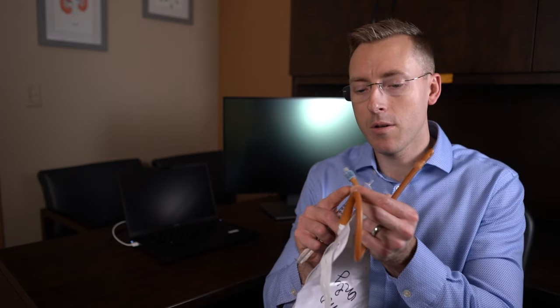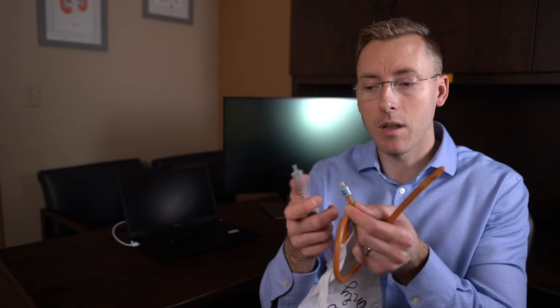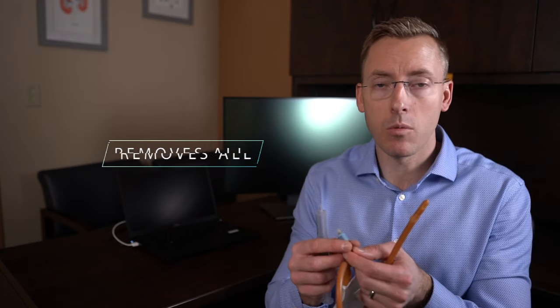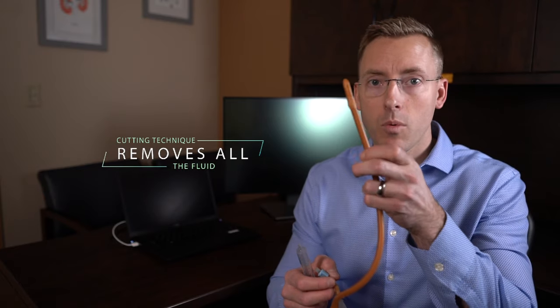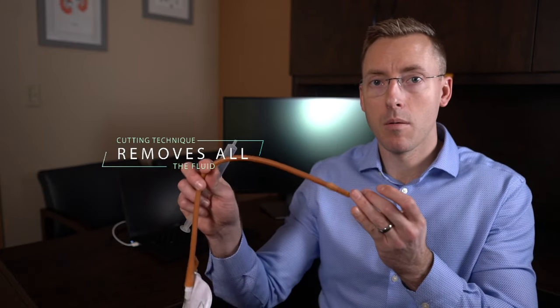The other way that you can do it is simply cut off this port right here. This is a simpler route and one I oftentimes suggest to men or women that have to remove the catheter at home to go into the shower and simply cut off this part here, the balloon port. What will happen is about 10 or sometimes more cc's of sterile water will drain out. The balloon goes away and the catheter simply pulls out easily.